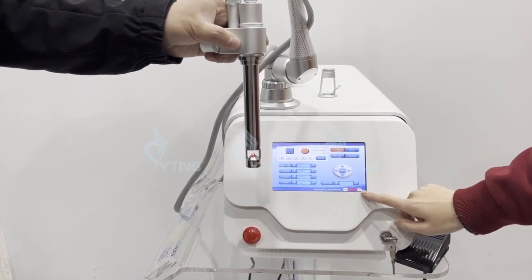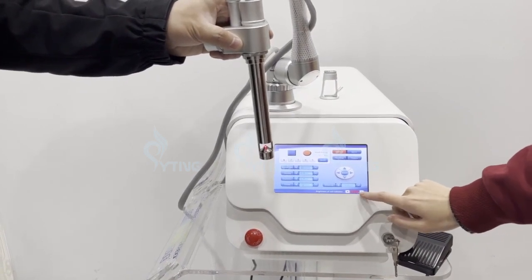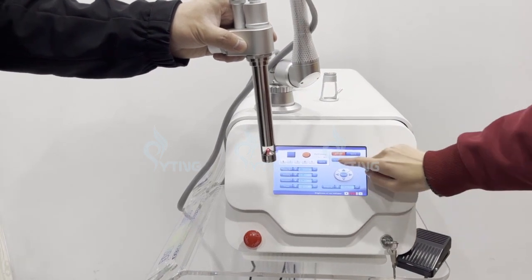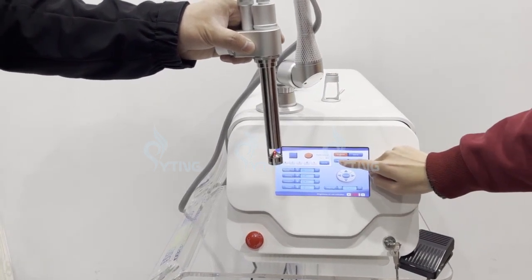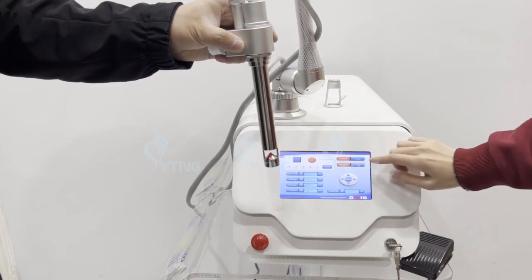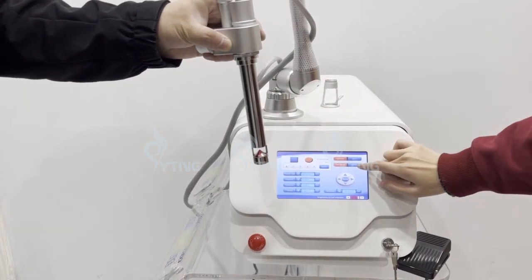This is the red dot shape, the size of the red dot. Click here to preview the shape and click here to get ready.